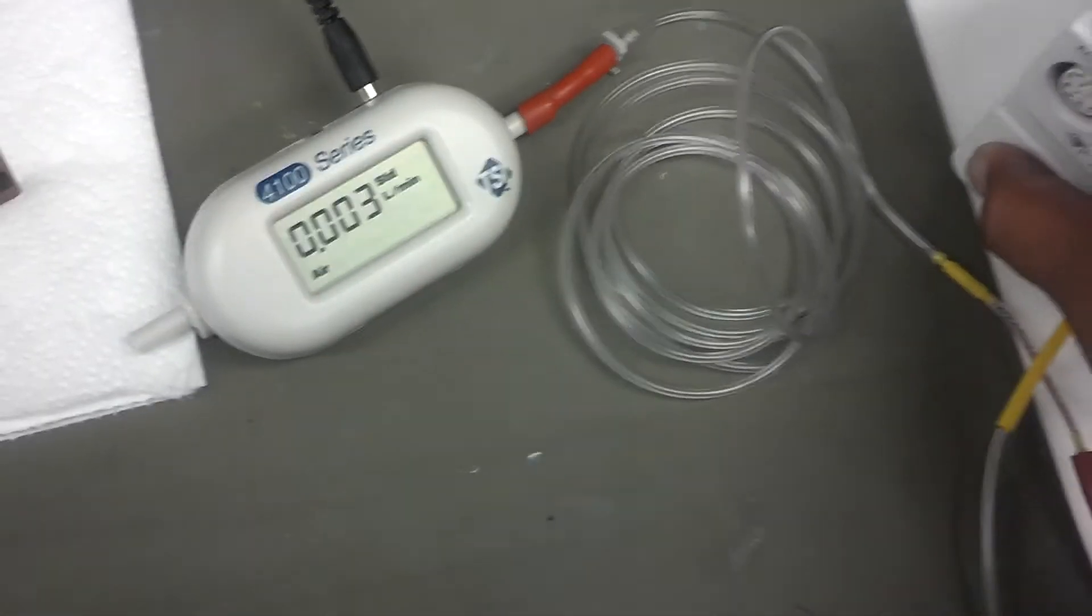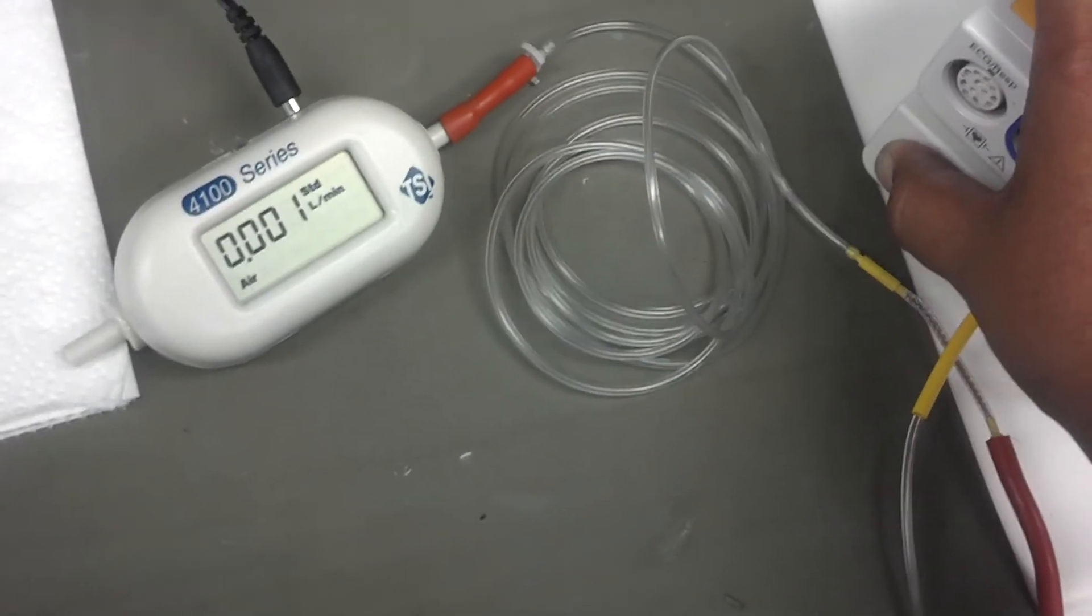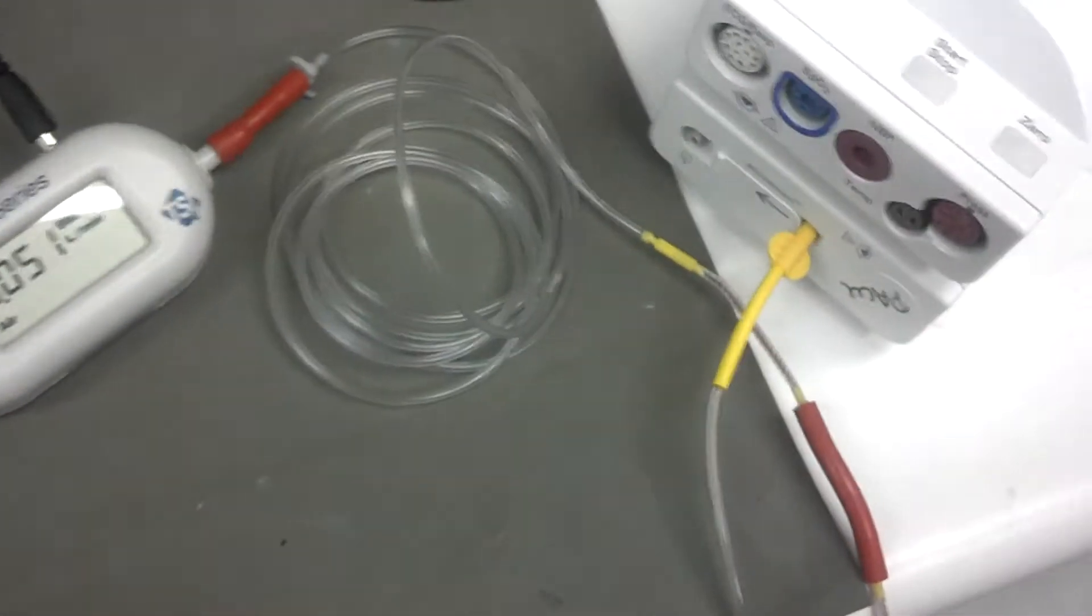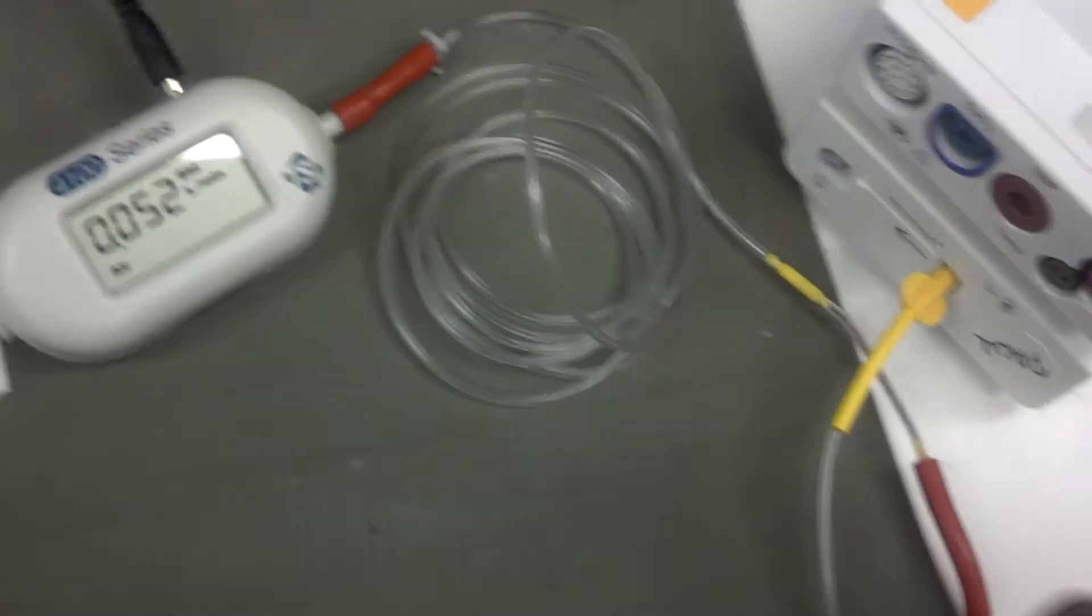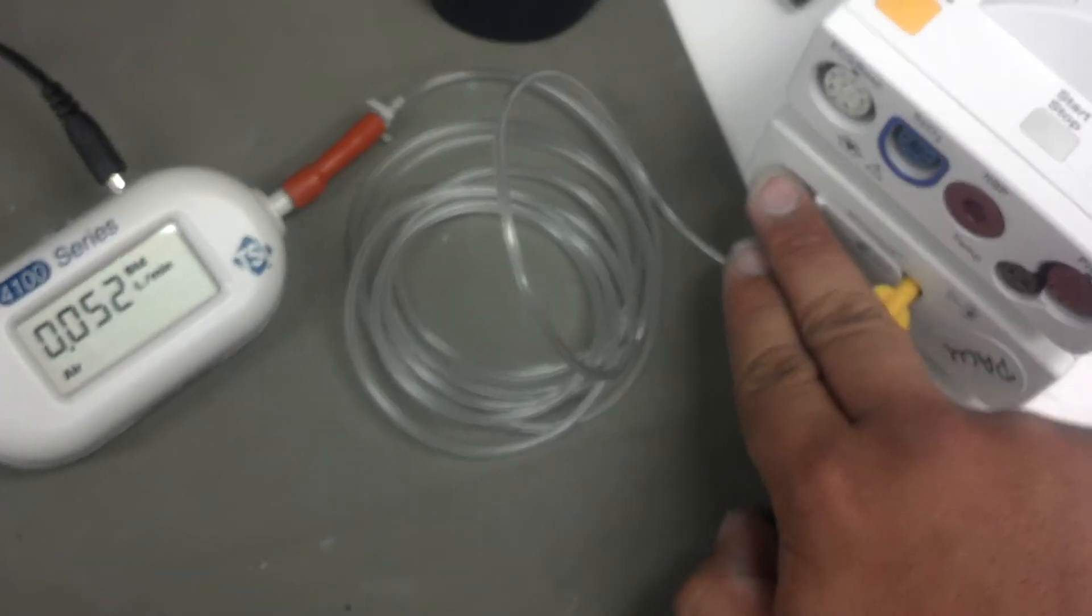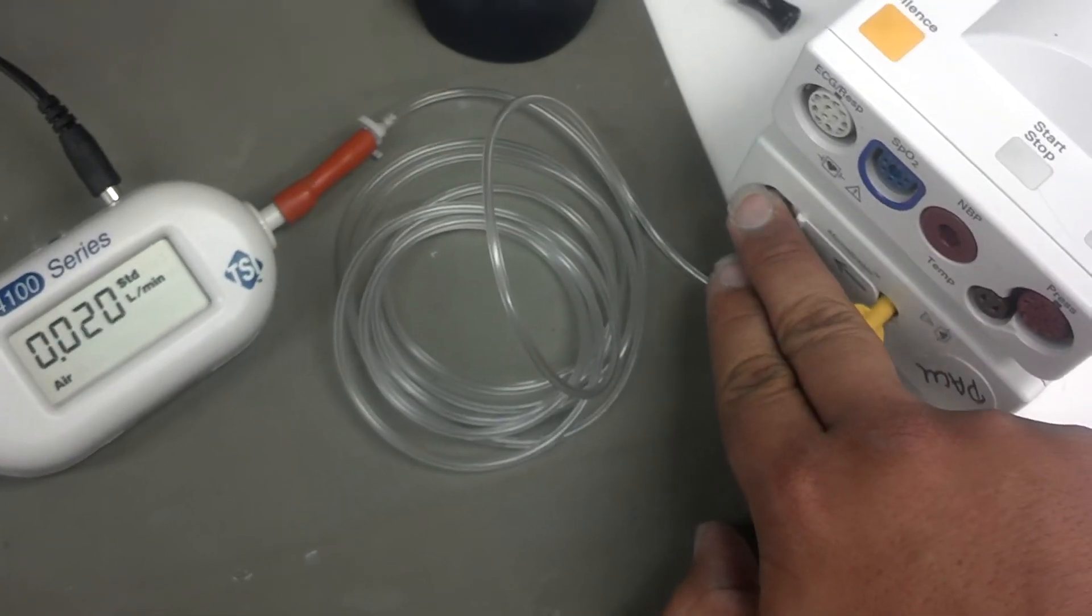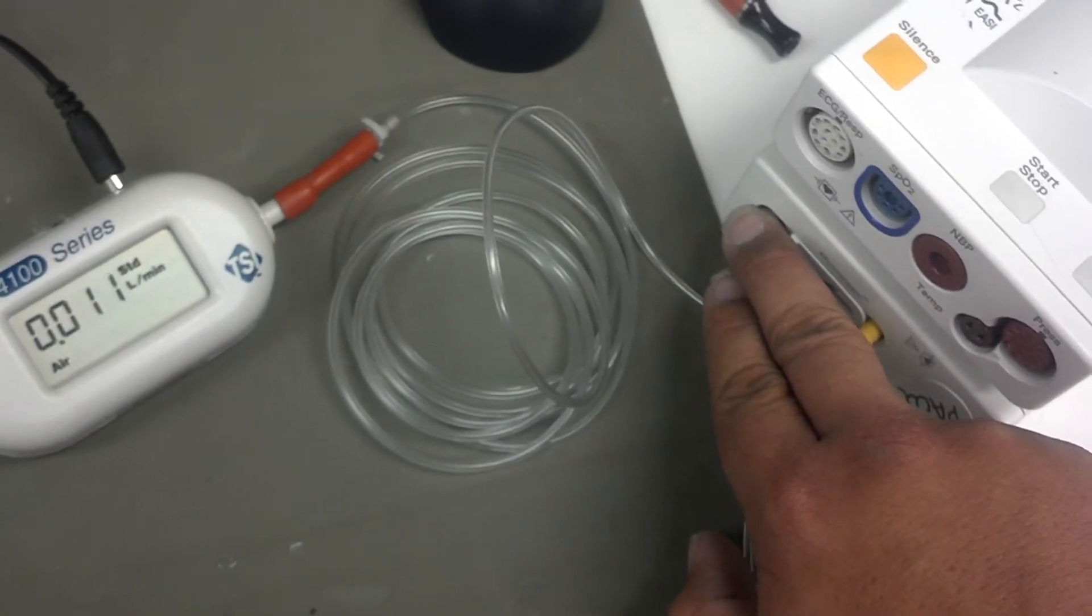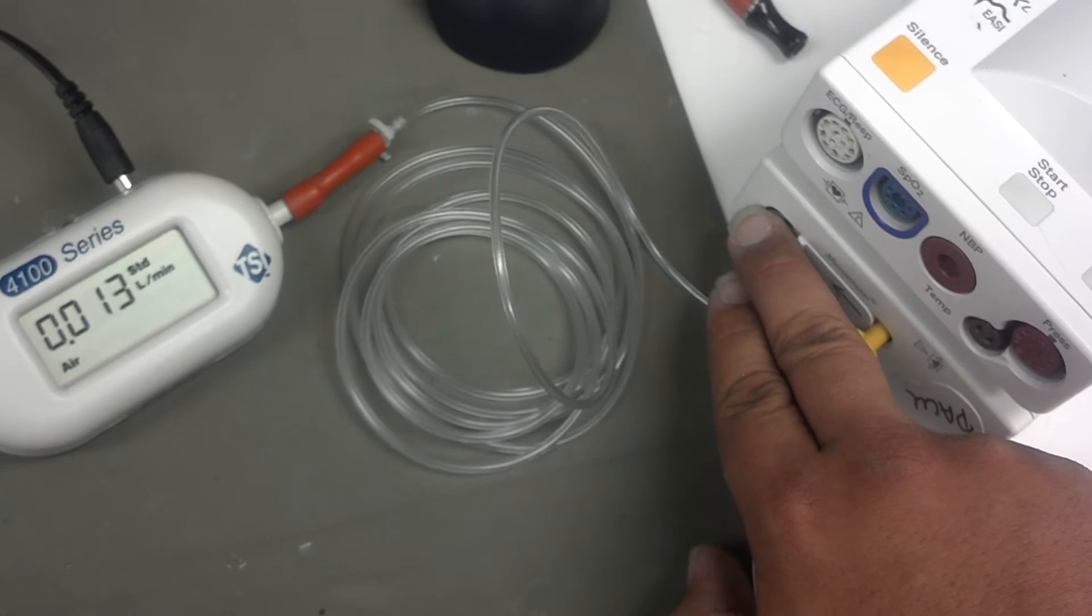You can see it drops down below three, even at zero. Try applying more pressure right here if for some reason it's not dropping.